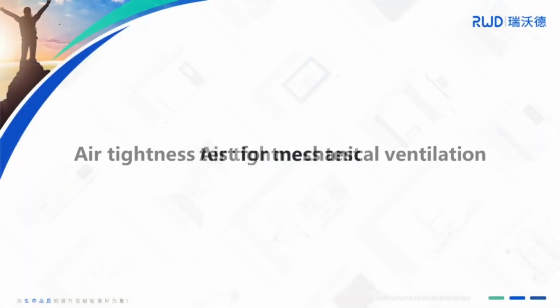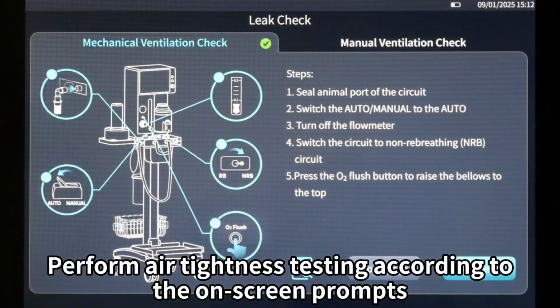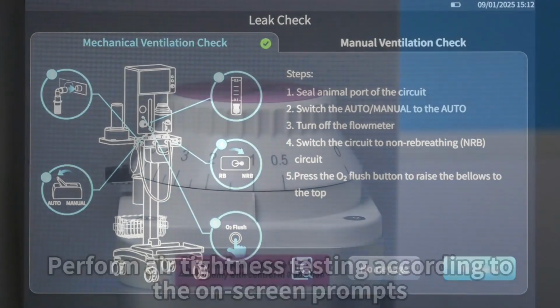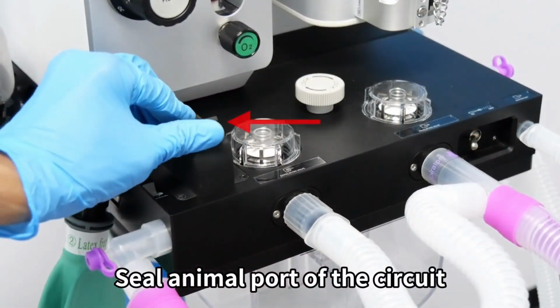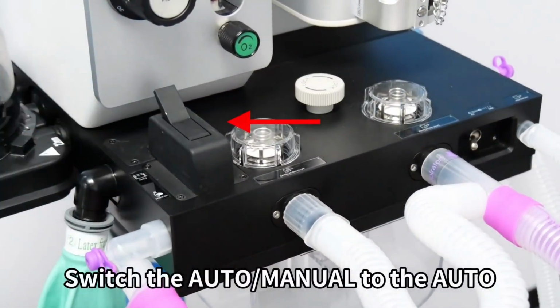Air tightness check for mechanical ventilation. Perform air tightness testing according to the on-screen prompts. Adjust the vaporizer dial to 0. Seal the animal port of the circuit. Switch auto or manual to auto.